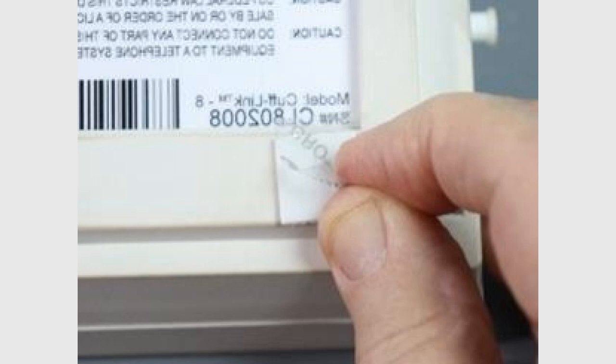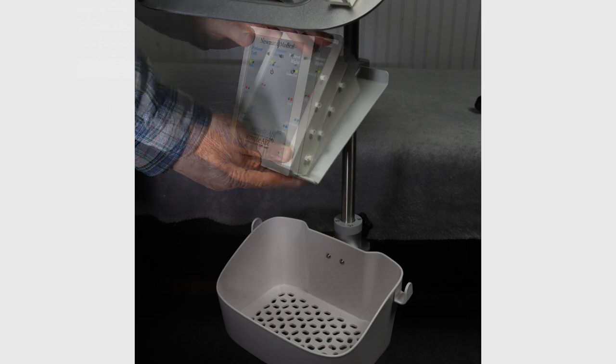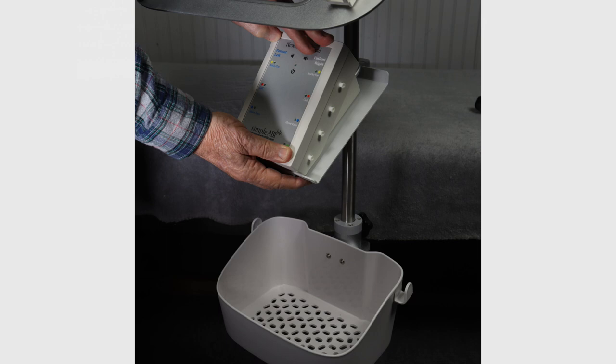Remove the material covering the adhesive and place in position. Align the cufflink in the center of the plate as shown. Apply moderate pressure to the face of the cufflink for 20 seconds while supporting the plate from the bottom.